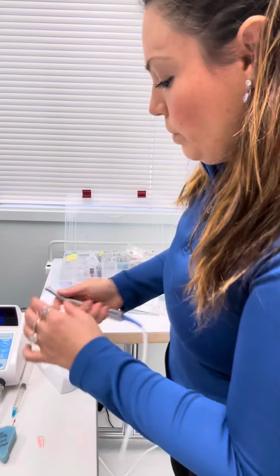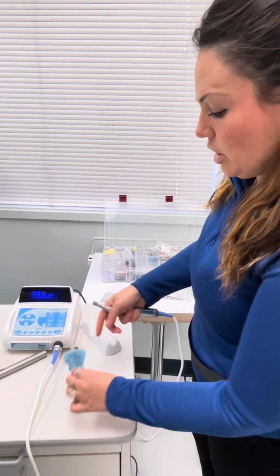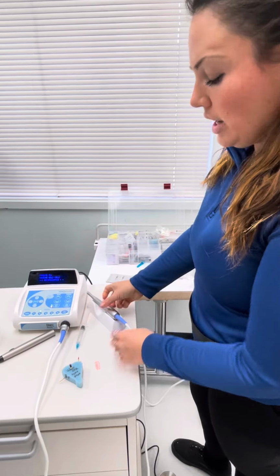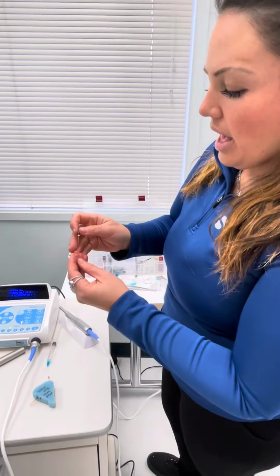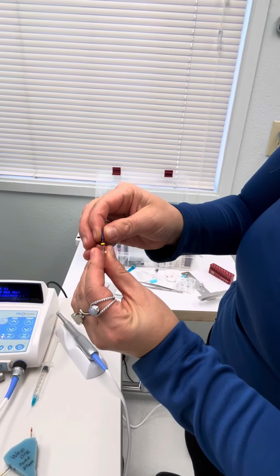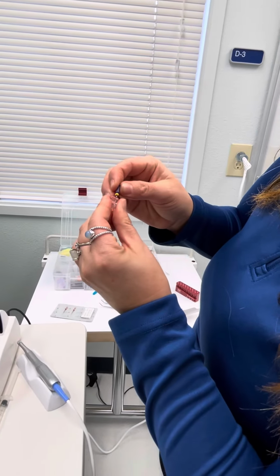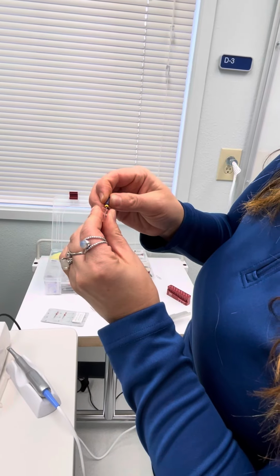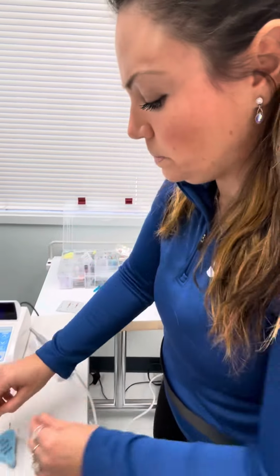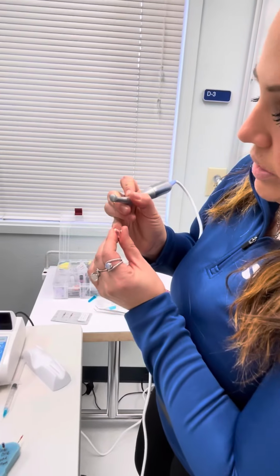So then they're going to go to their glide path. And this is where they're going to say number 2, right after the orifice opener. So if they had not gained their length at that point, and they would like to do it after their modification of their orifice, they're going to go beep, beep, beep, apex locator. Okay, we're set to, and like I said, I believe that it's best to use these gaugers that are on each and every file. So they're like, okay, 20, perfect, measured off of the lingual. So then at that point, they're going to start with their glide path.